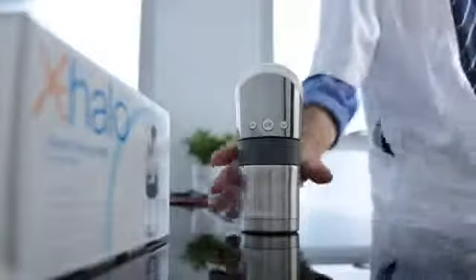Let me show you how it works — it's really quite easy to use. It's battery powered, so the batteries go in here. Press and hold the OK button to switch on.